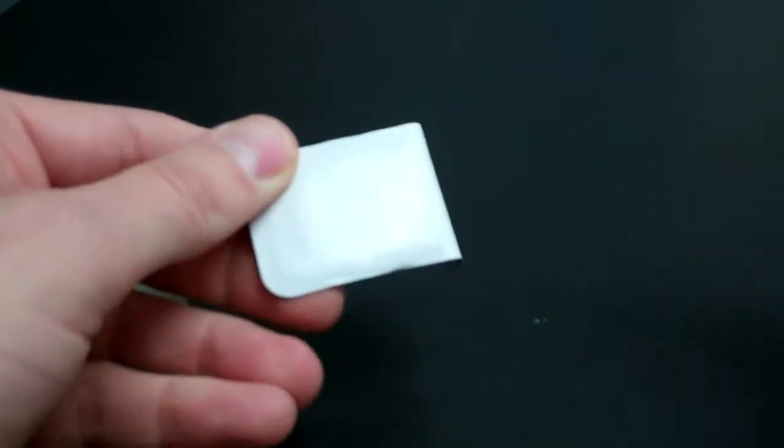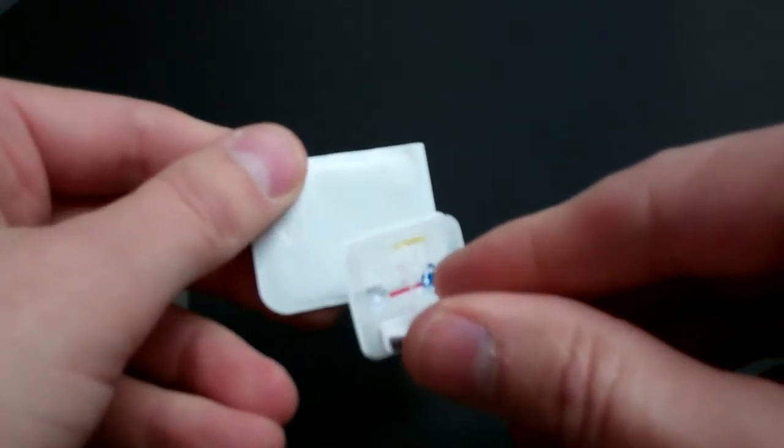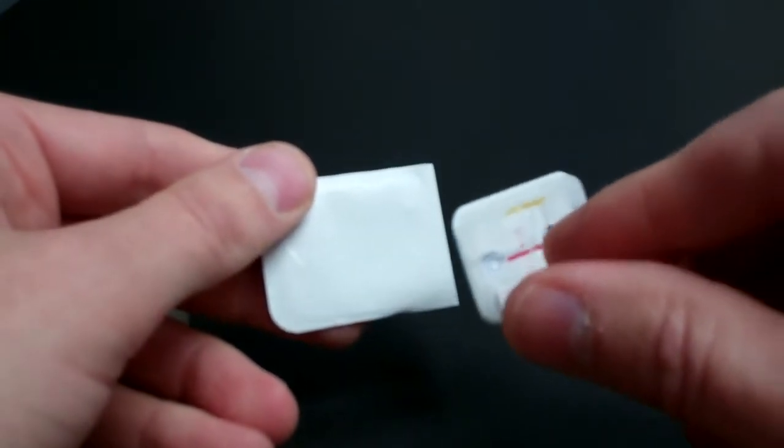To change to the next film or phosphor plate you would just pull it off and reposition it on the next packet.